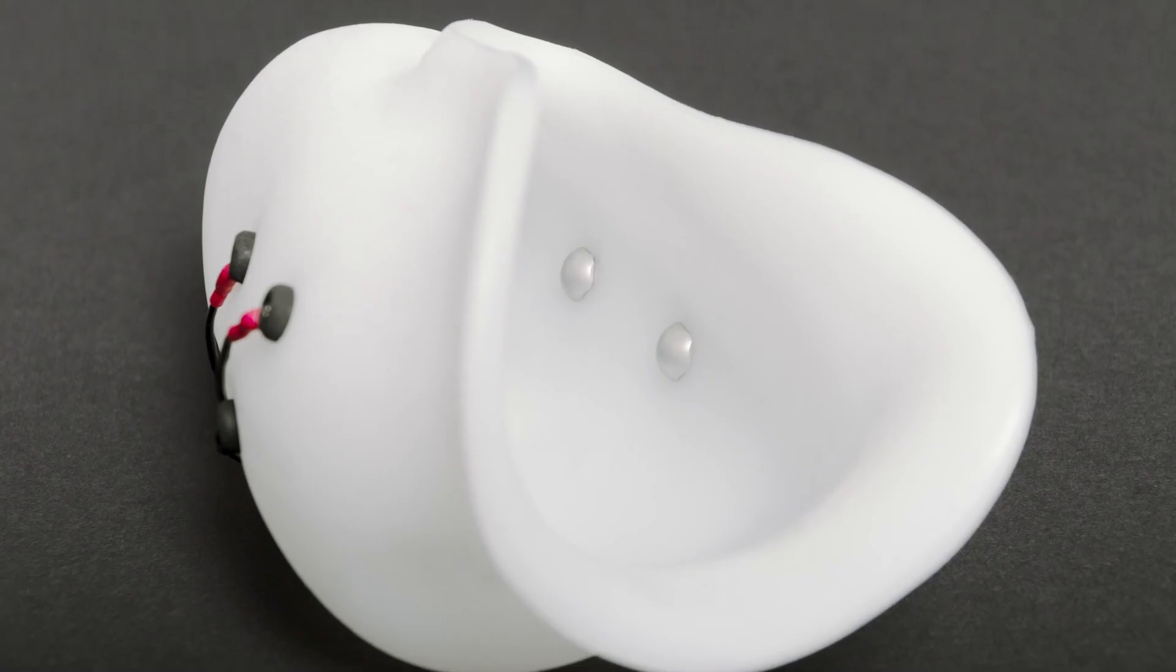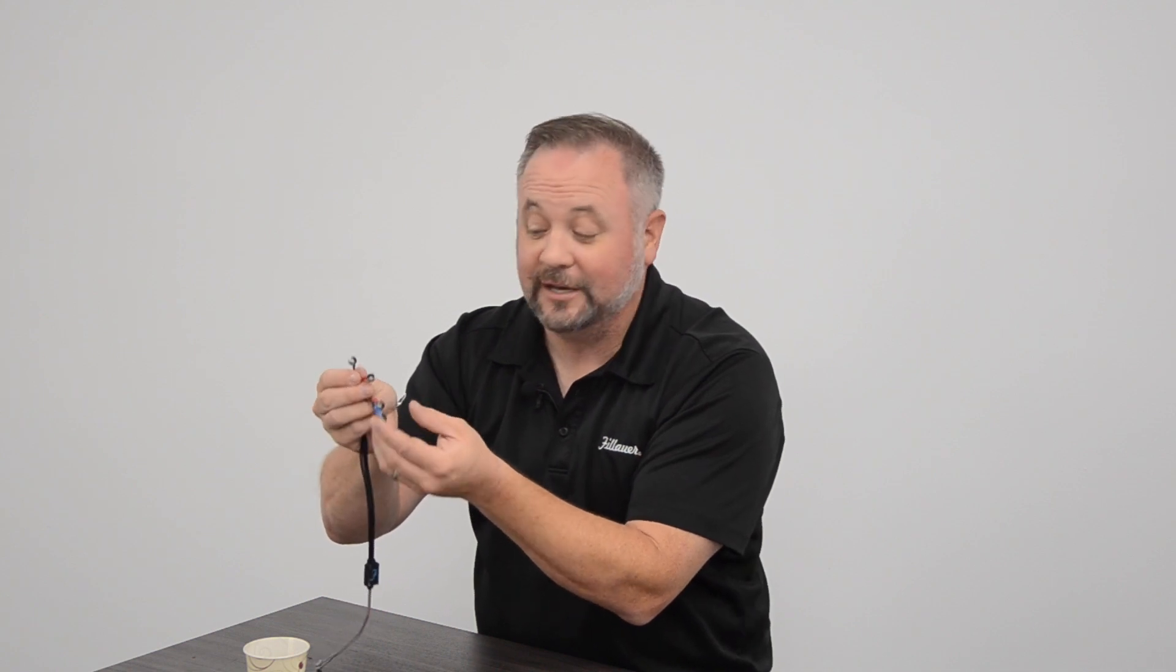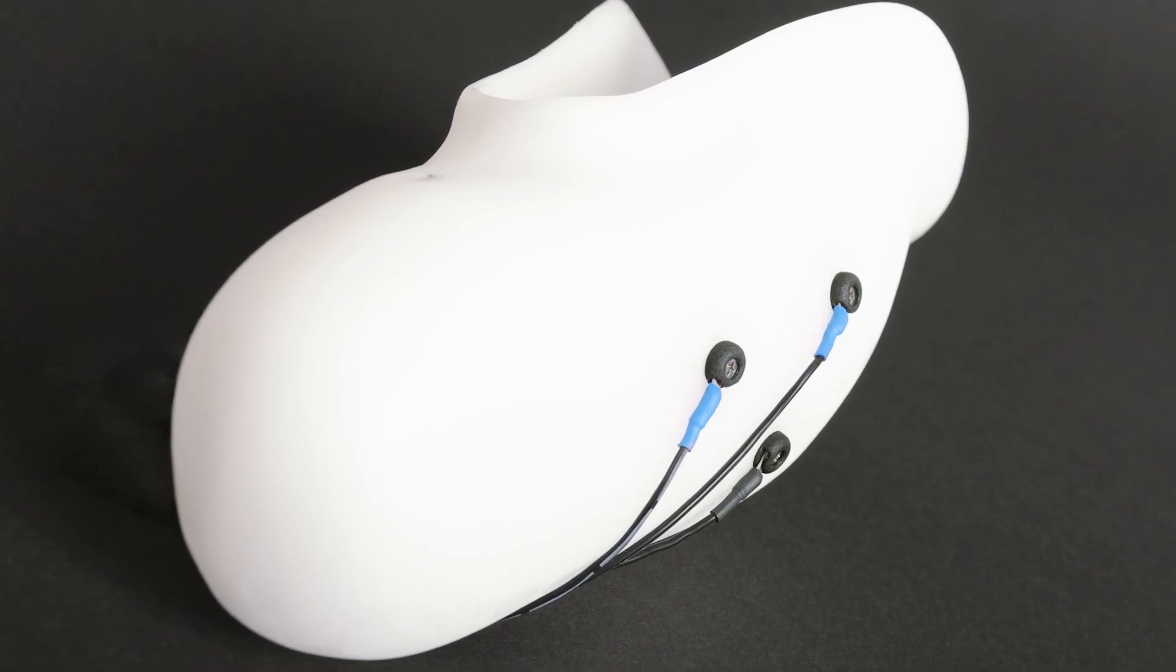No big sealing rings, no extra dummies. All I got to do is screw this thing together, pop it in my socket, and I have almost infinite ability to adjust where each of these electrodes sits in my socket wall so I can get the best signal from my patient possible.